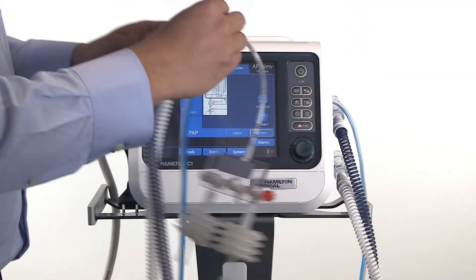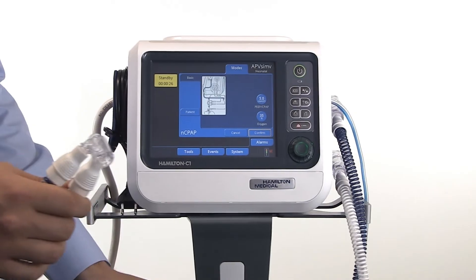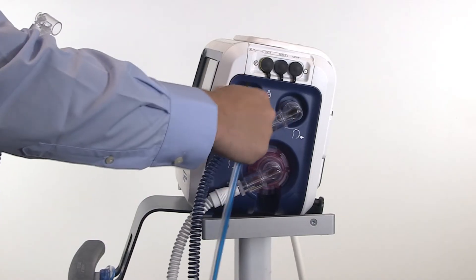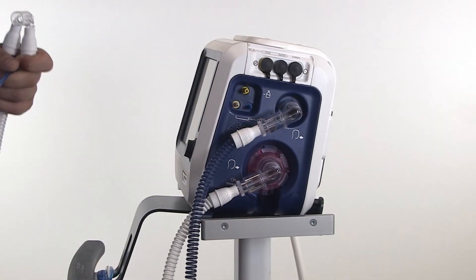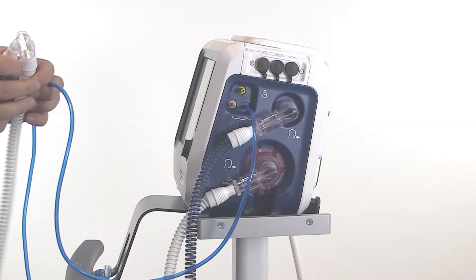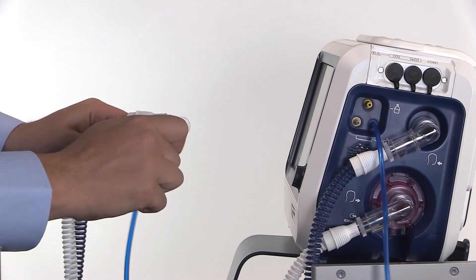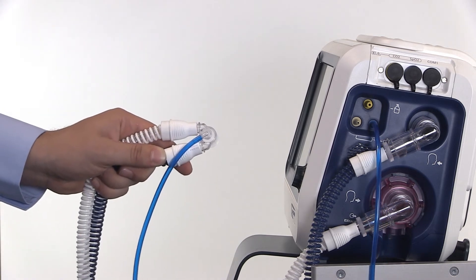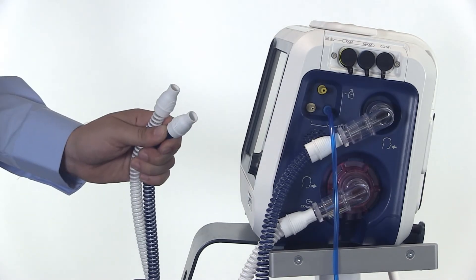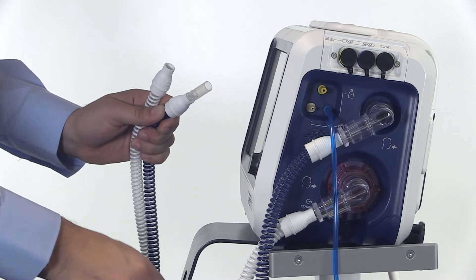Firstly, disconnect the flow sensor from the breathing circuit and the tubes from the ventilator. Then connect the pressure monitoring line to the ventilator. There are two ways of connecting the pressure line to the circuit. If using nasopharyngeal C-PAP, you need to attach the pressure line to the Y piece. Attach the T-piece to the pressure port of the inspiratory limb and plug the pressure line into the T-piece.